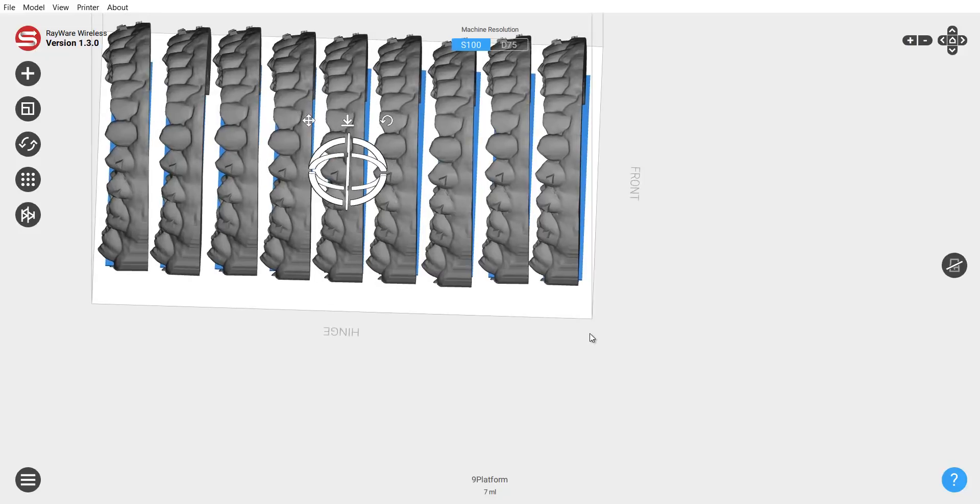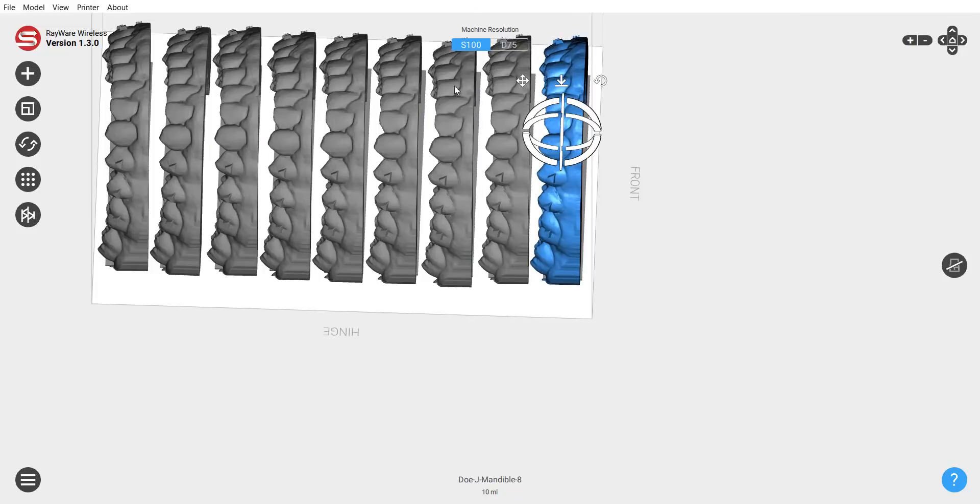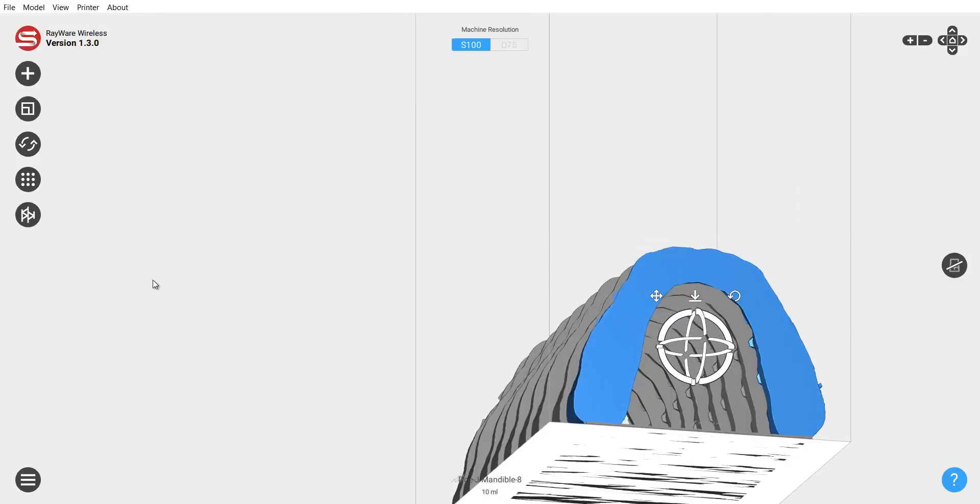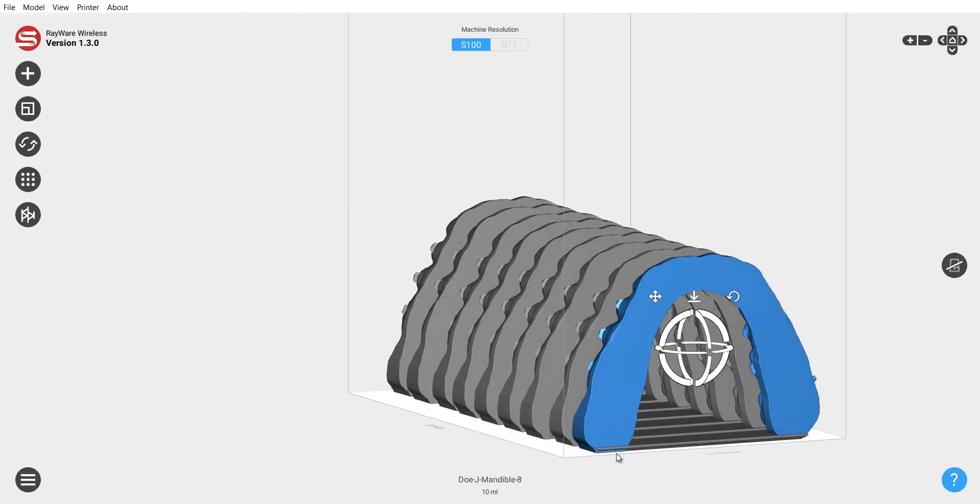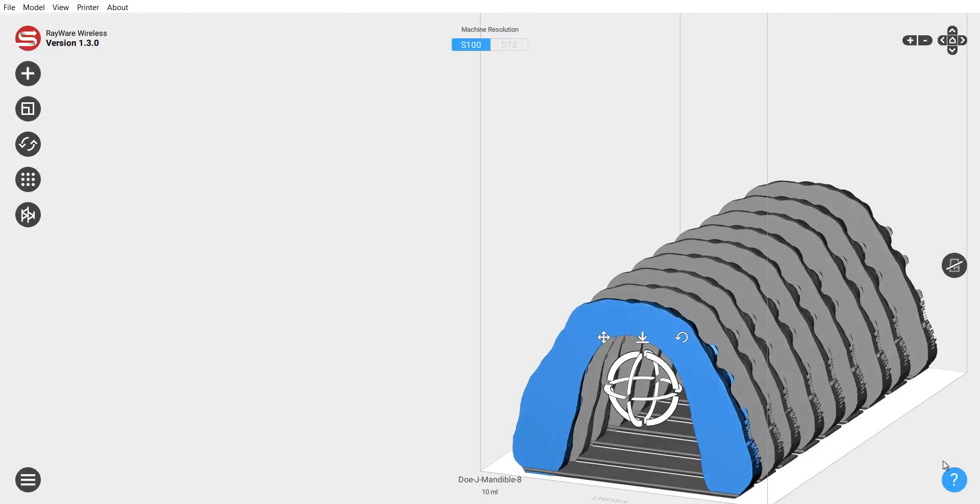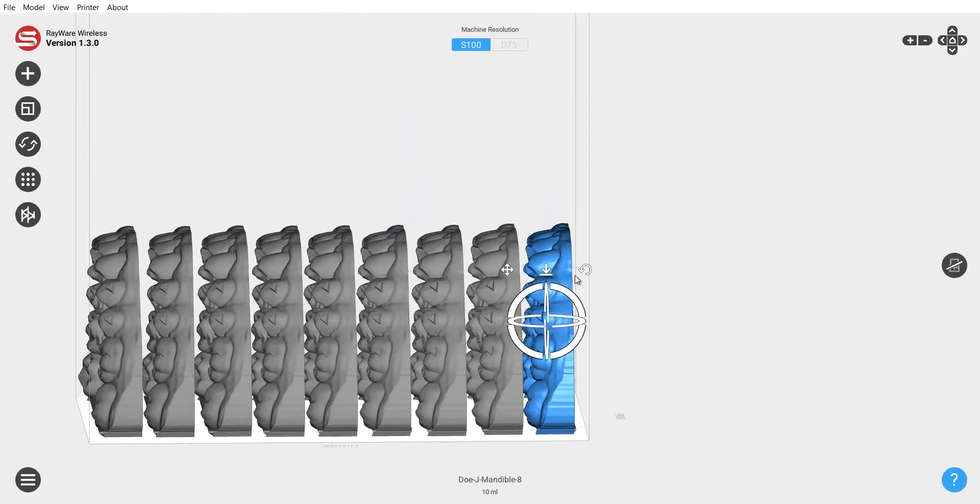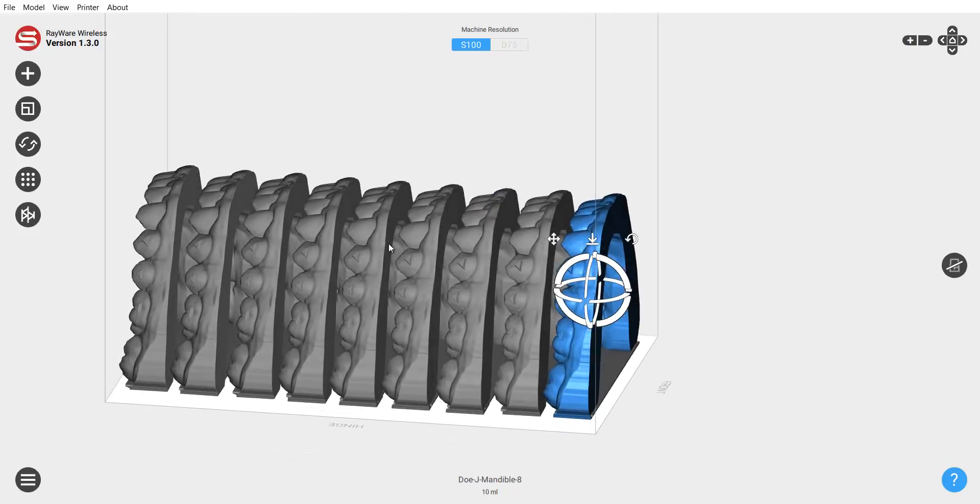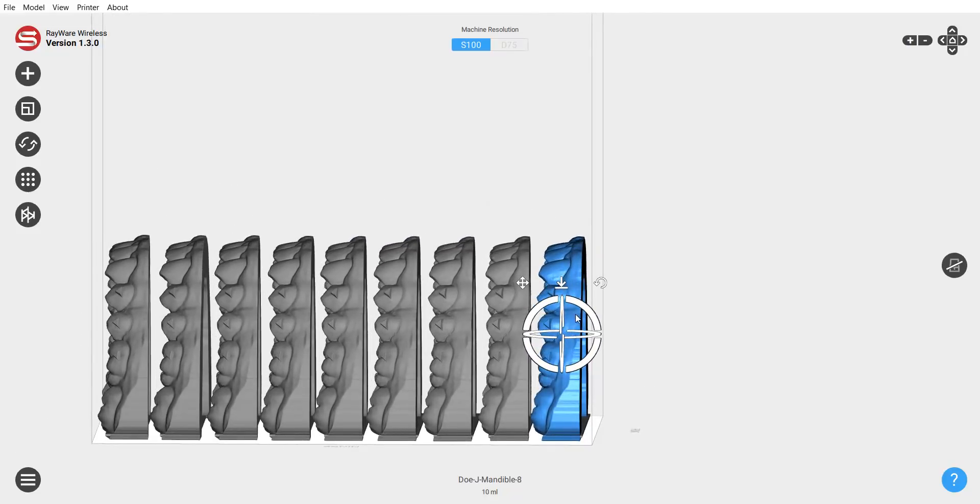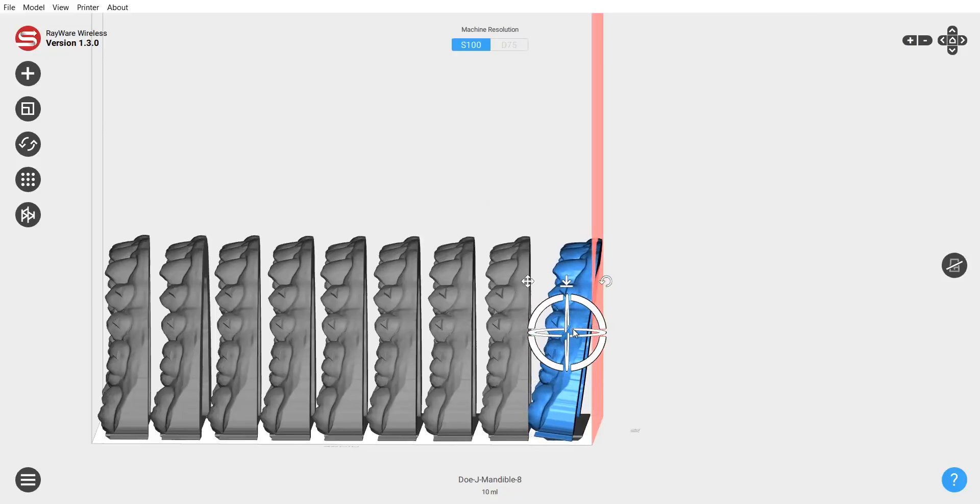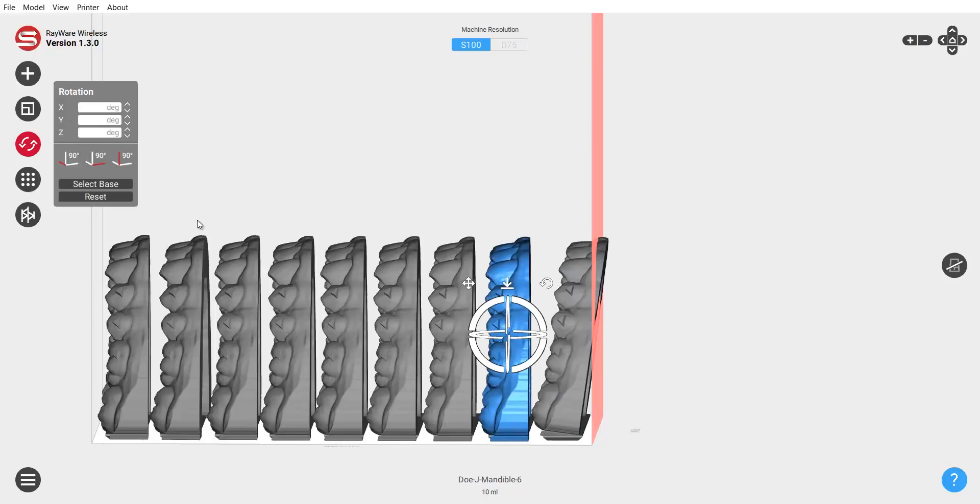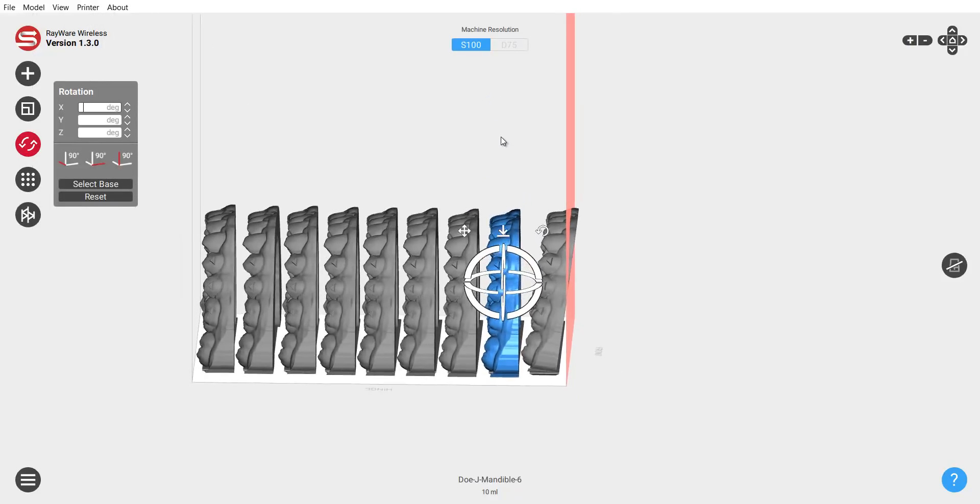Okay. So, now, none of the models are touching each other. This one maybe a little bit. I can see a space. That's what I'm looking for. Space, space, space. And I went very quickly through this as far as rotating and everything. But there's space. None of them are violating the print platform. They're all embedded within these platforms. The platform itself has a little bevel to it. So, you just put an instrument right underneath there and pop them all off very quickly and easily. And lastly, if you did have teeth where they were severely retroclined. These teeth are somewhat retroclined. But the nature of the lingual surface doesn't really worry me about that. But if you needed to print on an angle, it's as simple as tipping them back like this. Now, if you want to do a very specific angle of your tilt, you could also come in here and mess with the degrees of the tilt. Right in these. You know, specifically put in 10, 20 degrees. So, that is it for this process.